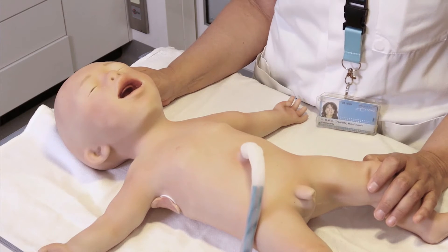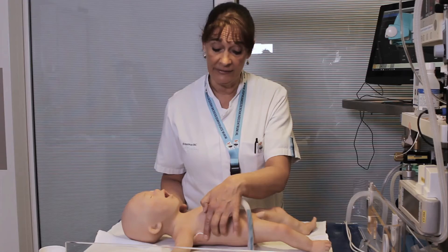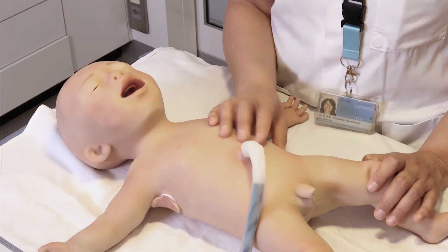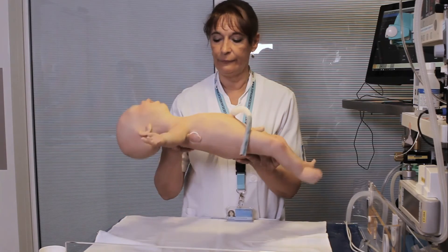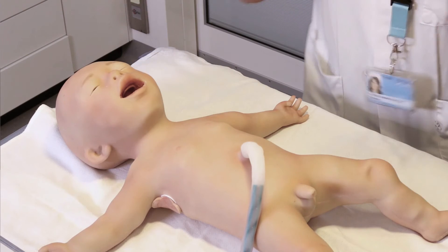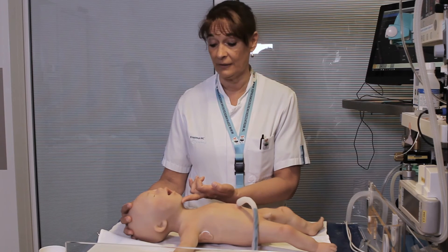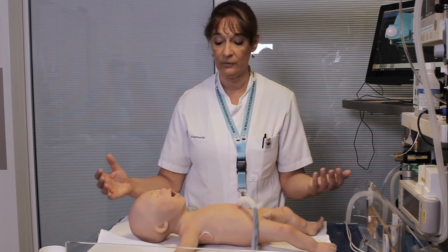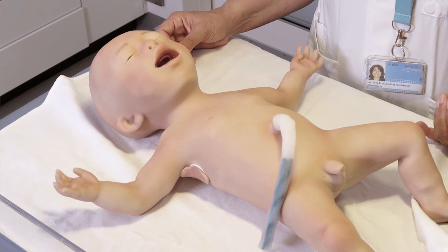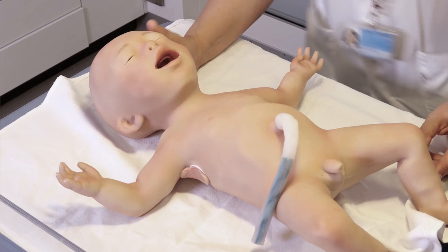Another feature is that you can perform a pneumothorax drain — this can only be done on the right-hand side, but it is a very good skill to practice. If you move the baby you'll see it is floppy and the head moves. With many mannequins they are very stiff, so you have to choose the right position — the neutral position with head tilt chin lift — and because the baby is floppy it is not always in a good position. You can also move the arms and legs in a scenario, making the baby more realistic and alive.